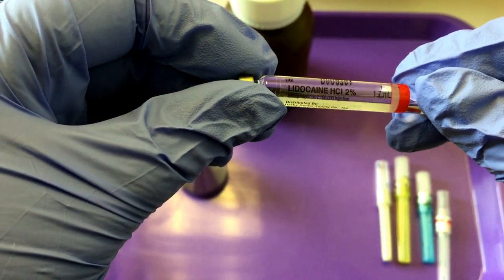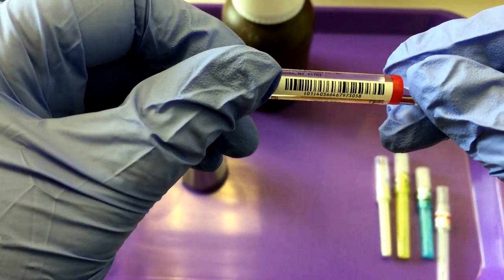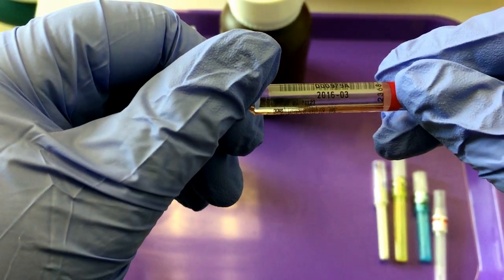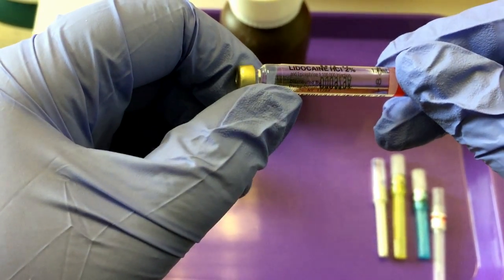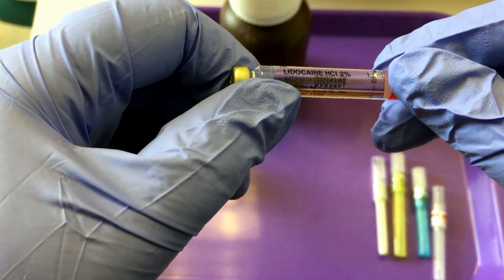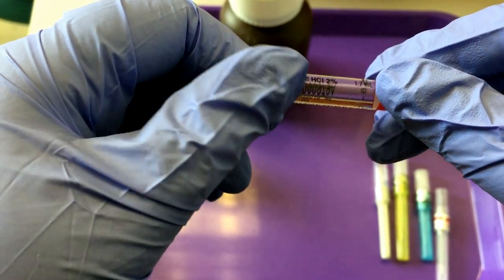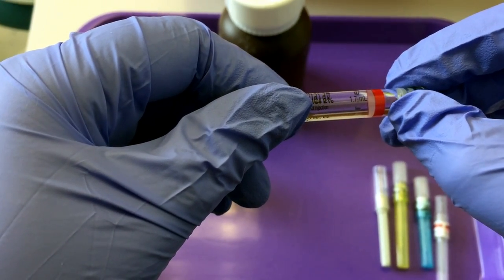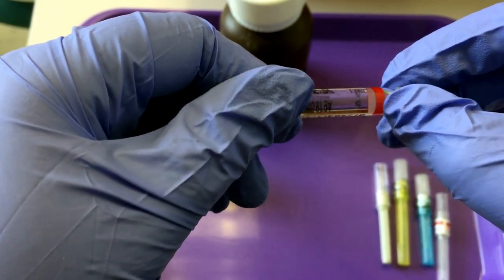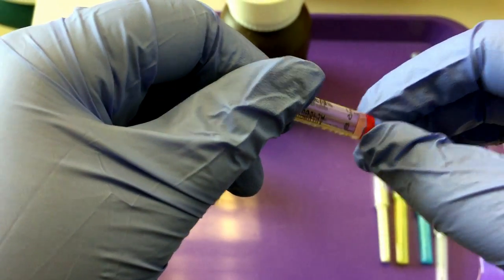Here you can see we have lidocaine. You can check the expiration date, whether or not it has epinephrine in it. This one does. Epinephrine is a vasoconstrictor. Each anesthetic type has its own color coding, so lidocaine has a red stripe for easy quick identification.